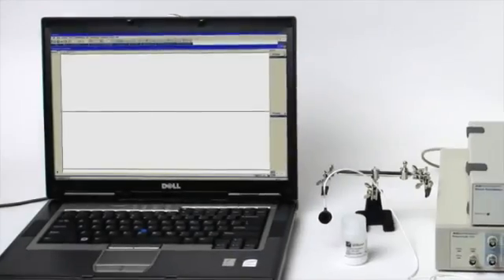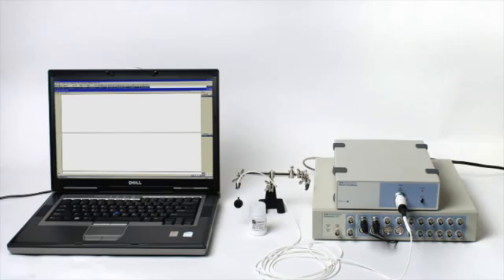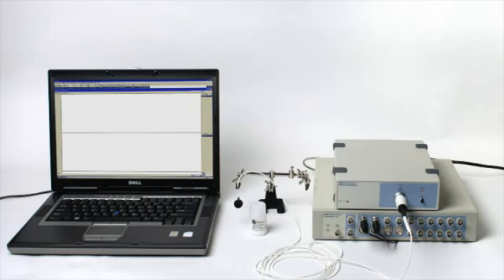Probe calibration. Calibrating new or previously calibrated blood flow probes with the ML191 blood flow meter is very simple.